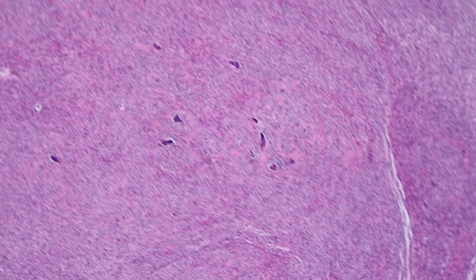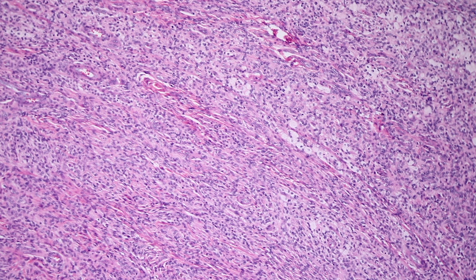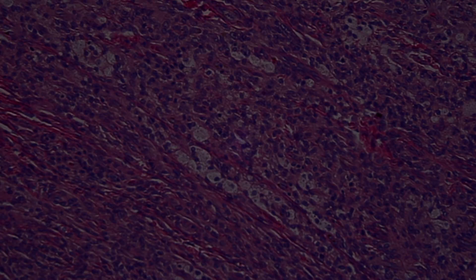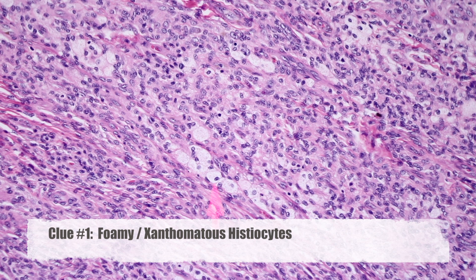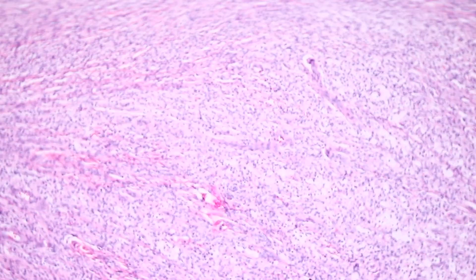Even from low power on the 2x objective, you can see large multinucleated giant cells scattered throughout, but they're very infrequent in this example. You'll have sheets of mononuclear cells. If you just look at this, you might not at all think about tenosynovial giant cell tumor because you don't see the giant cell. So again, you have to learn to recognize it when giant cells are absent. This one is spindled in some areas, but there's one useful clue here: foamy histiocytes — xanthomatous cells — which are a very common and useful diagnostic clue in both giant cell tumor of tendon sheath and in pigmented villonodular synovitis.